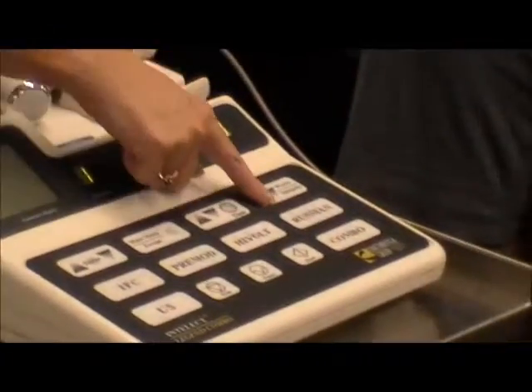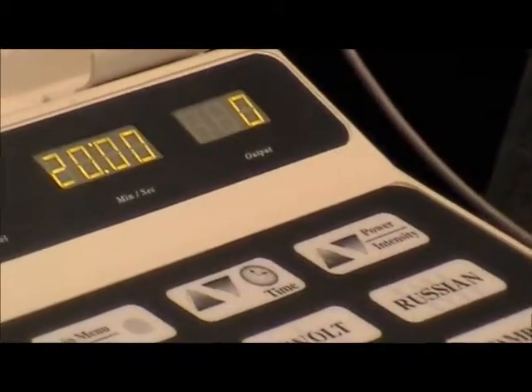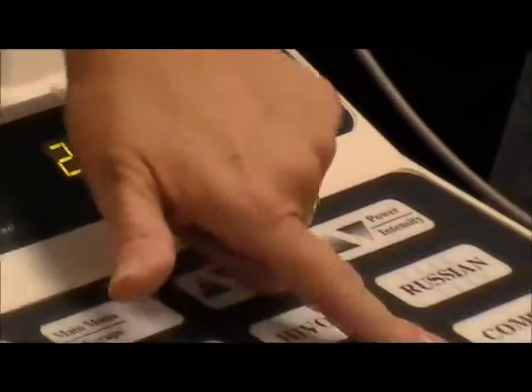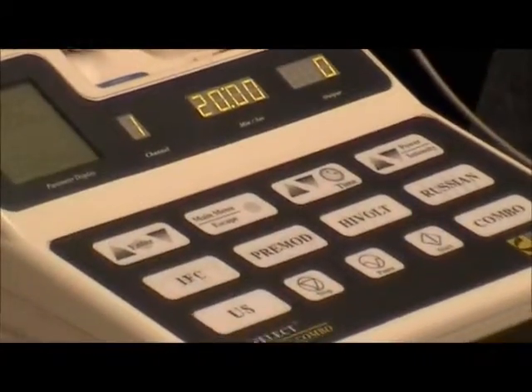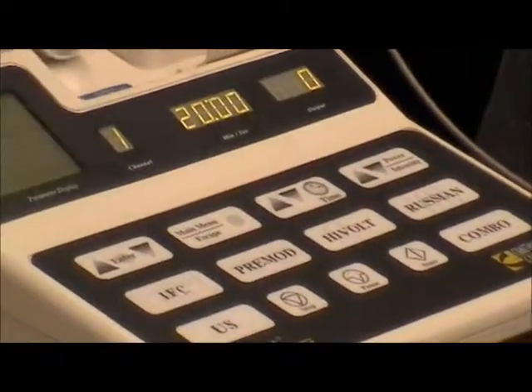Once you've got that set, it automatically also defaults to 20 minutes. If you want more or less than that, adjust your time here. This is where your output, your intensity will read. You go up or down. You can, like you did with ultrasound, preset this if you have an idea of what it should be. It won't be going till you hit start. Okay? So you can preset that if you want to, or just wait till they're going. It's not like you're going to be trying to do this and turn up, so it's almost as easy to do once it's going.